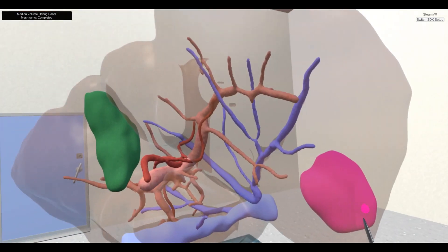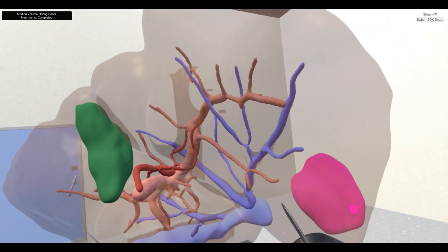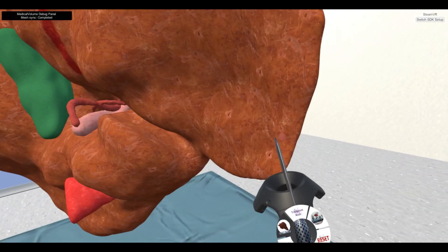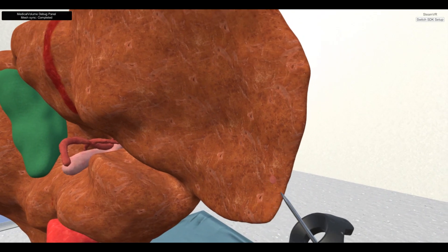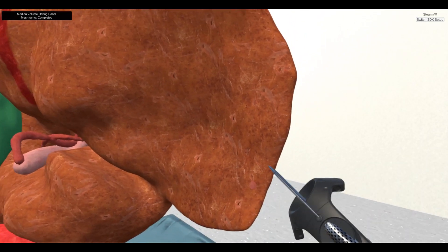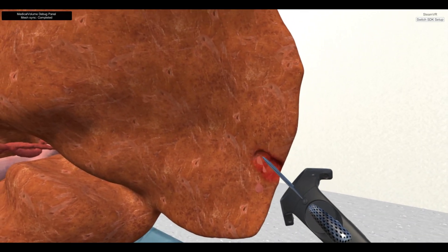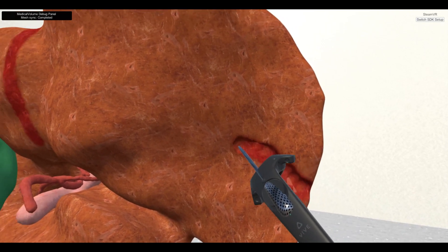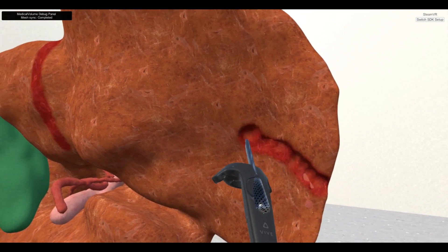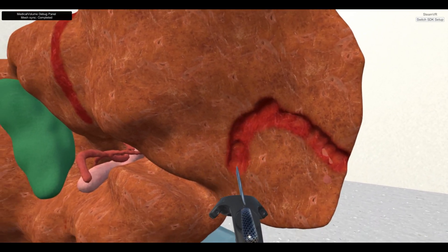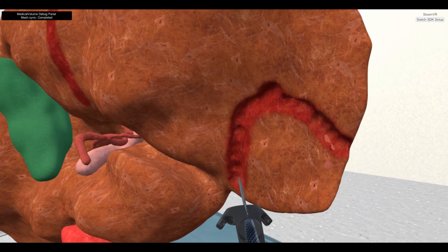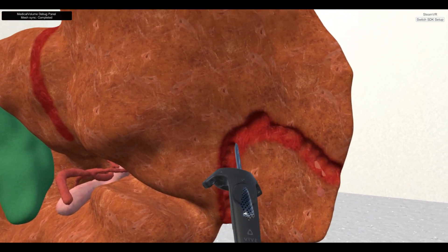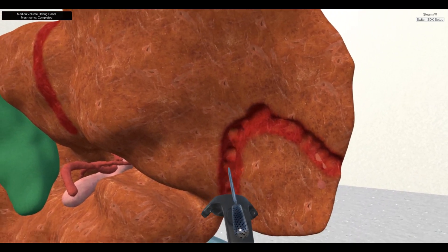There are several options on the controller touchpad to choose the visualization methods of the 3D organ model. During pressing the trigger button of the right Vive controller while there is a collision between the virtual knife and occupancy grid data, the volume data will be modified, and the volumetric mesh will be regenerated for the cutting area only. Moreover, the cutting surfaces of the volumetric mesh are painted with another layer of texture.